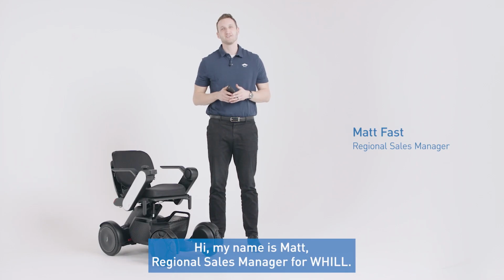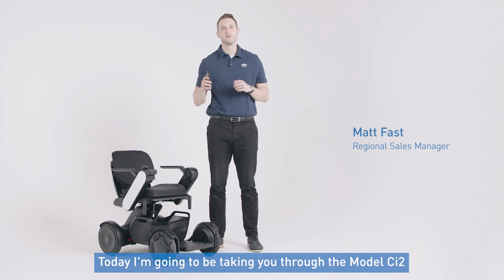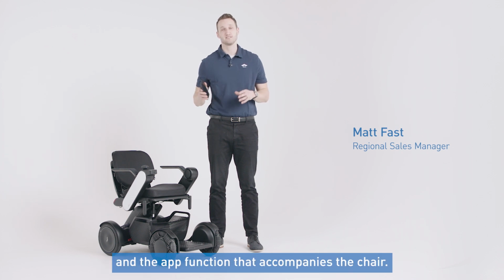Hi, my name is Matt, Regional Sales Manager for WHILL, and today I'm going to be taking you through the Model Ci2 and the app function that accompanies the chair.